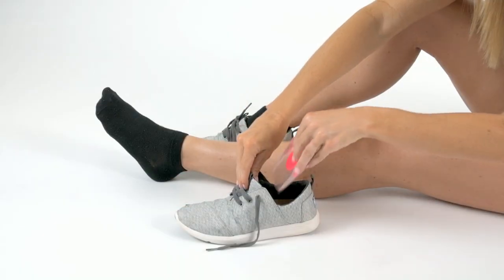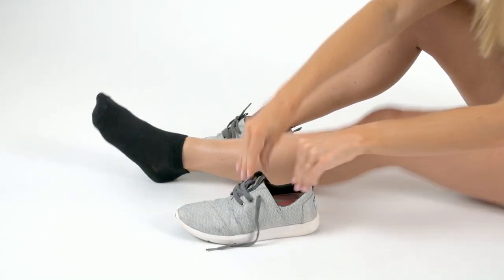You can't beat that anywhere. So confidently order yours now for all-day pain-relieving support.